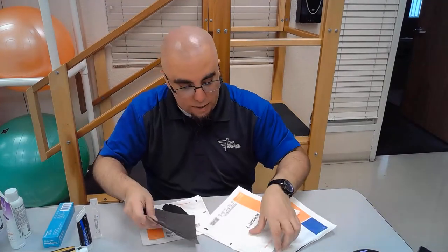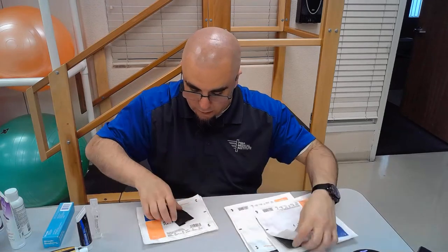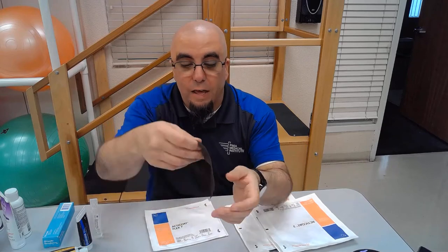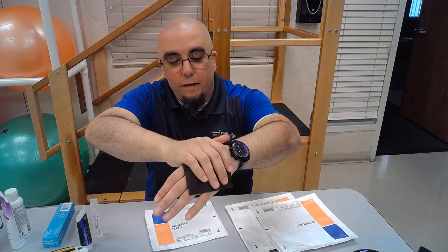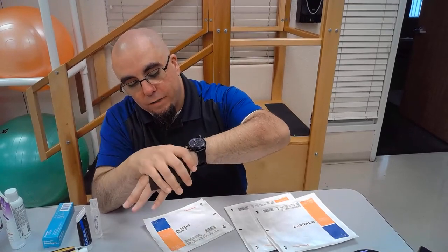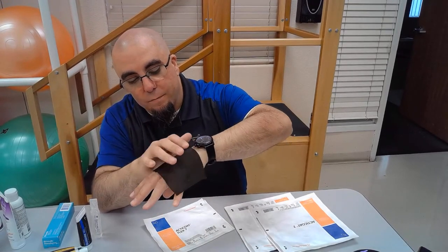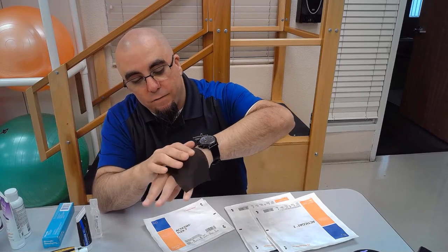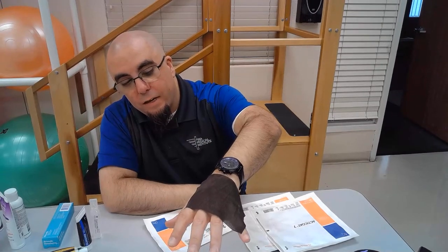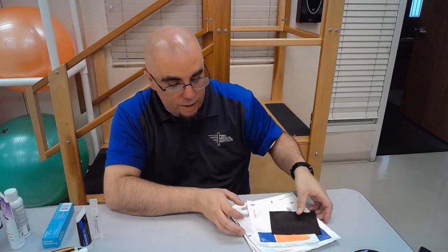Acticoat can be cut to fit wounds as well. When getting into Acticoat or PuraCol dressings, you're talking more cost to the patient, so you have to be aware of what your clinic or hospital will use. Acticoat works really well on burn patients because it conforms directly to the wound area, and a secondary dressing fits right over it — for example, over a burned hand.